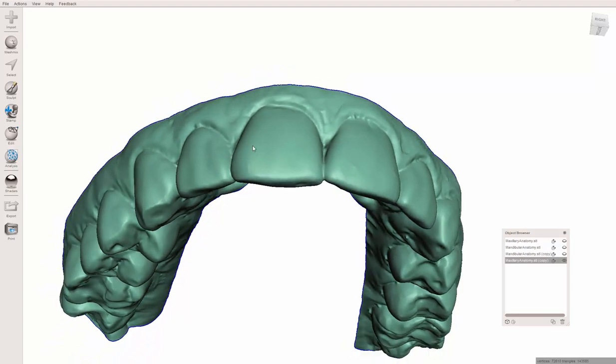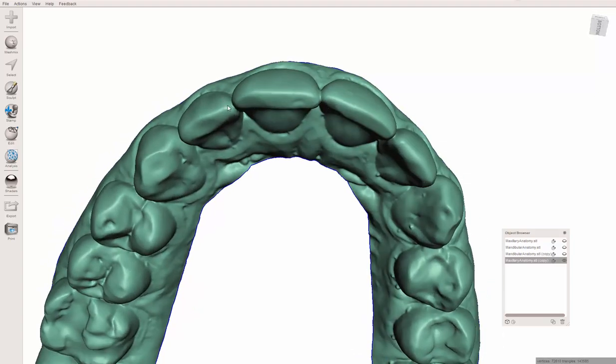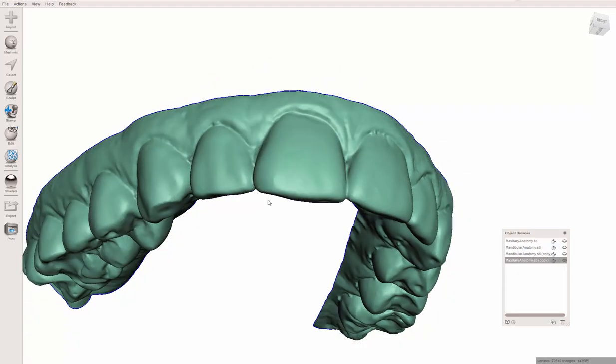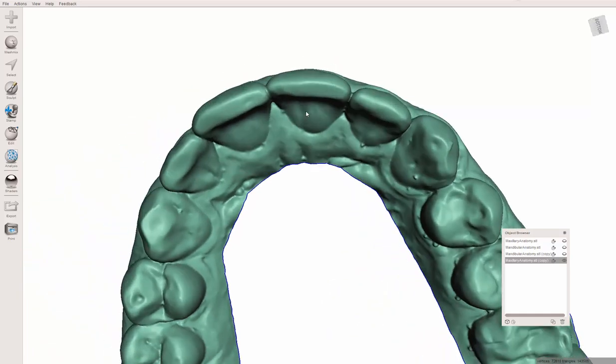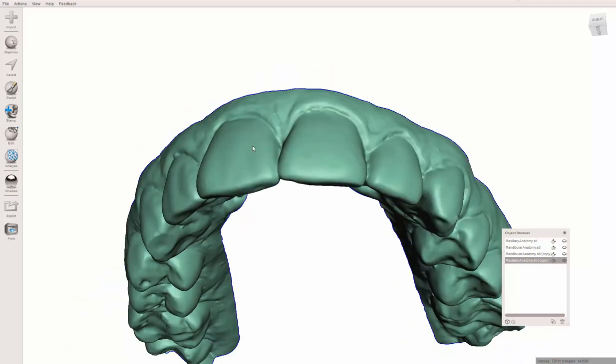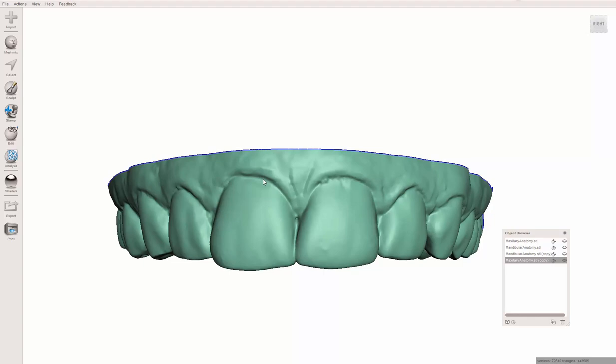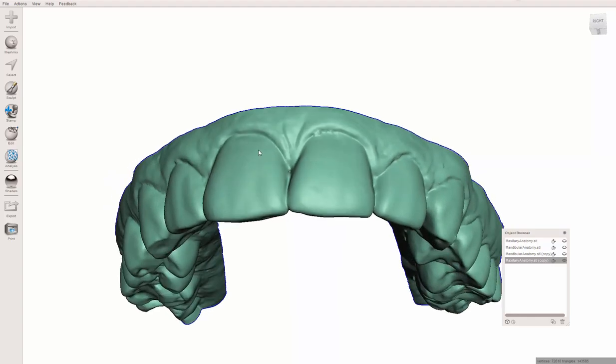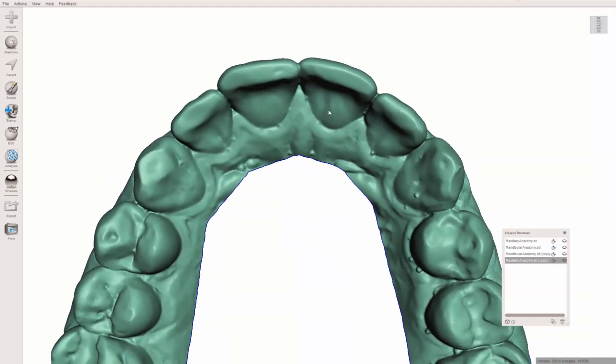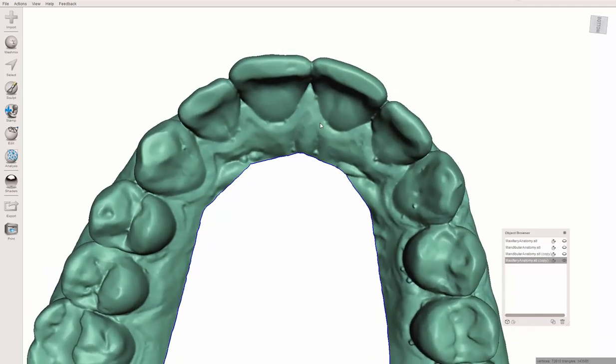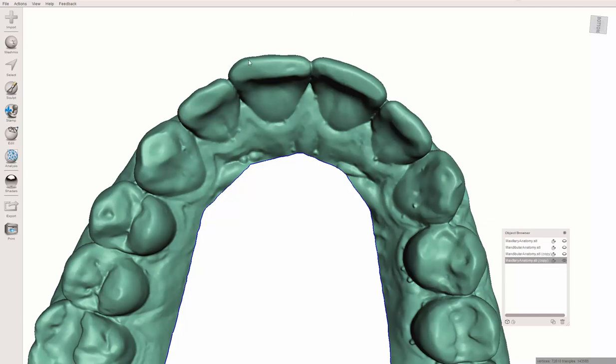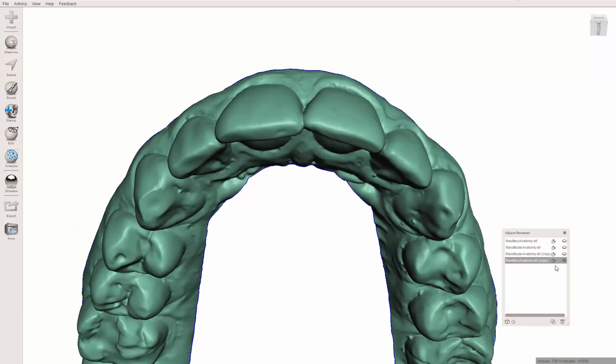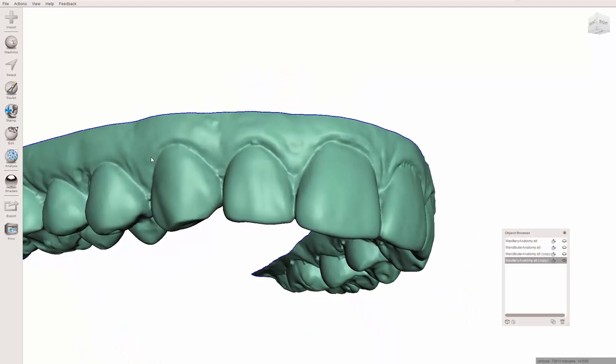So I'm going to go ahead and just bump these out. You could simply take some composite on a model and bulk it out, then shave off the lingual. That'll work, it's not real exacting, and it's kind of hard to reproduce if you ever lose that model. This technique I'm going to try here I think will work and give us a digital model that we can work with.